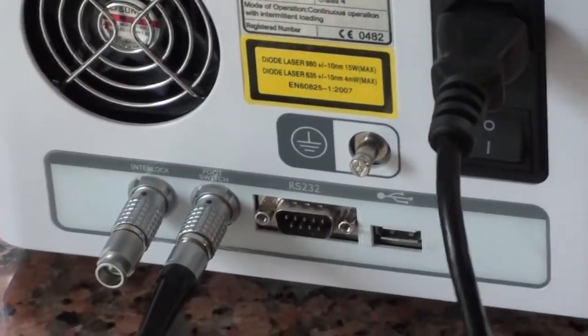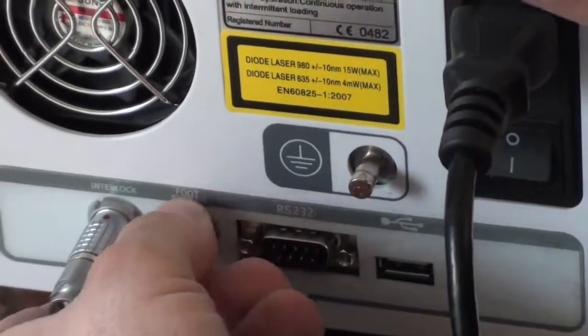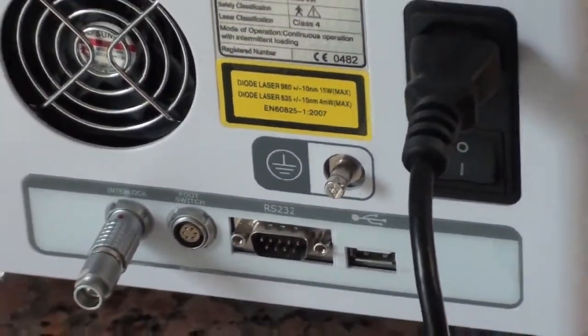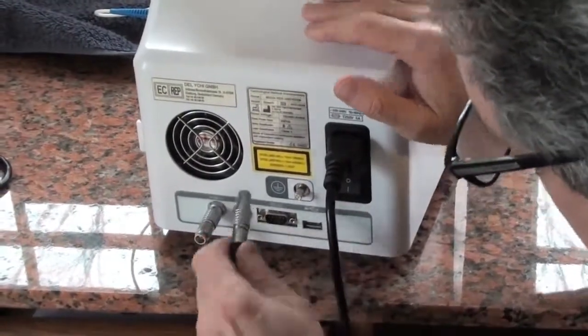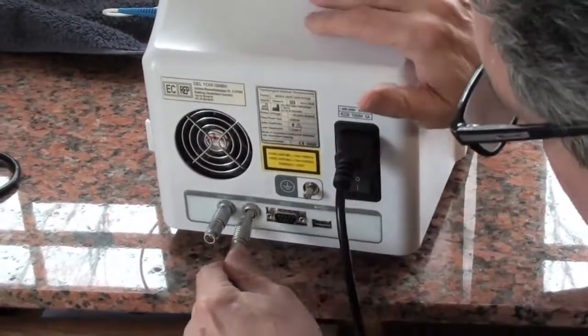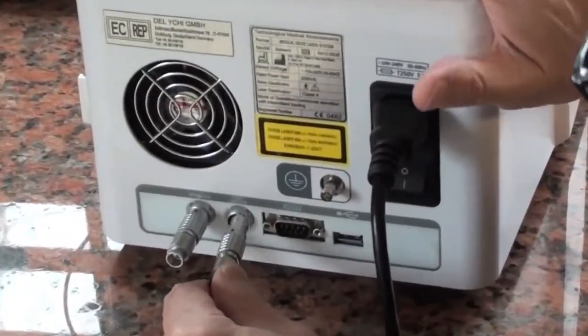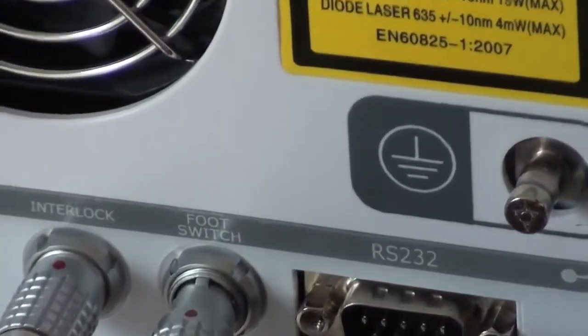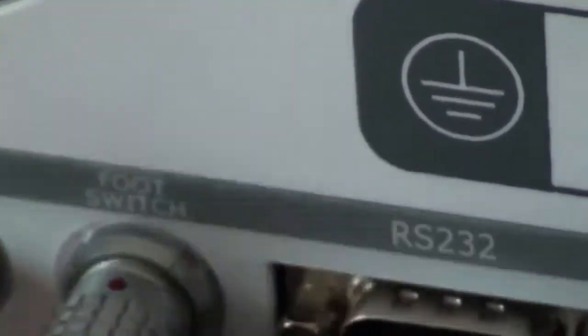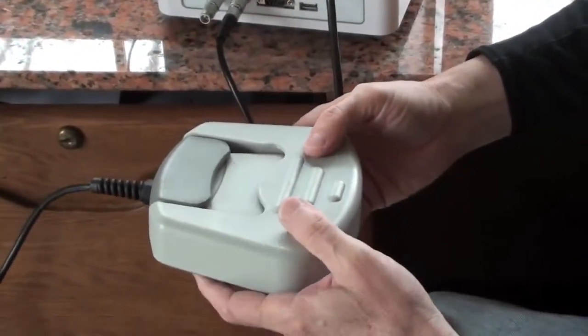The next feature is the foot pedal. Everything, they're all the same adapters, 12 o'clock. If you put it in not at 12 o'clock it will not go in, do not force it or you'll break it. Slips right in, see how it's in very easily. The foot pedal is used specifically when you're doing surgical warts and fungus toenails.